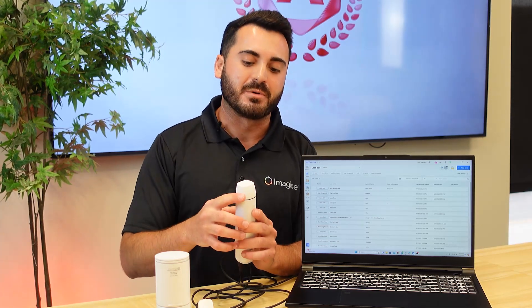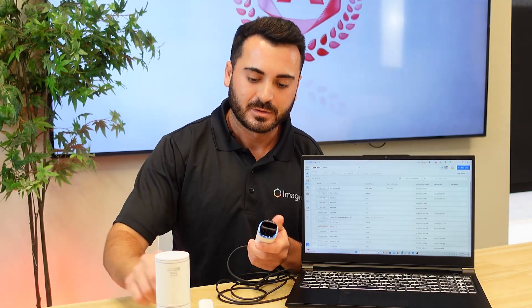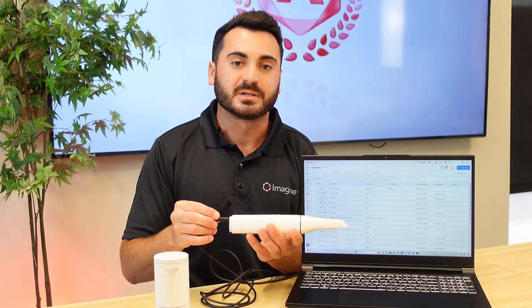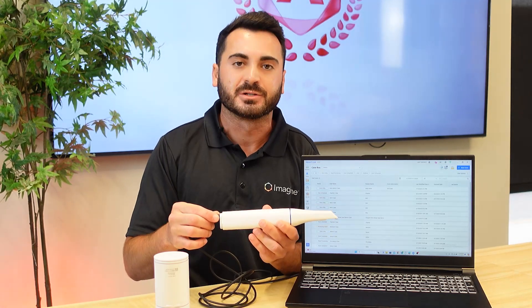It's important to note that whenever you have the cap on the actual scanner, it will remain in standby mode until it is removed and the scanning tip is placed on the scanner. You'll feel a slight vibration and you'll notice the green LEDs remain a solid green color, letting you know the scanner is ready for use.